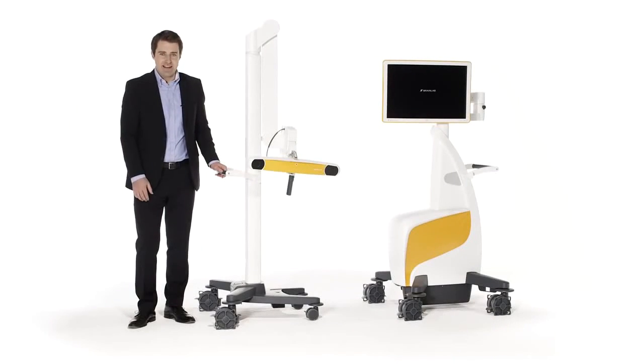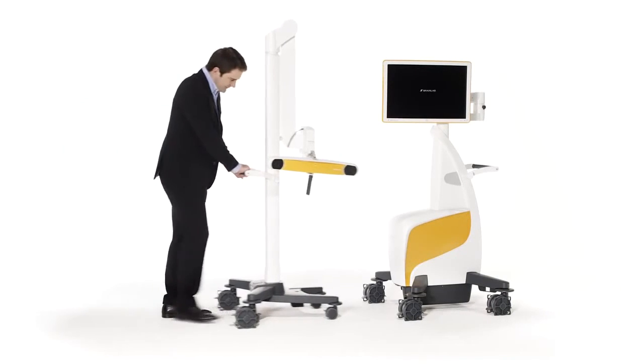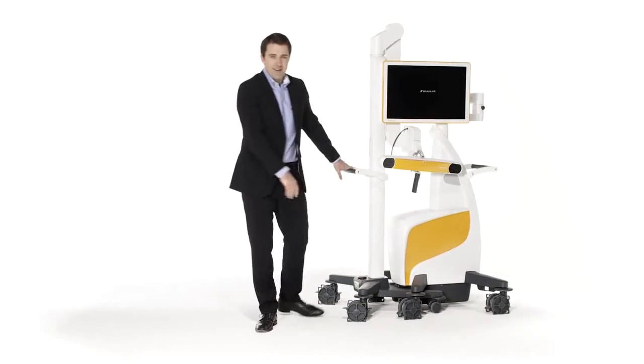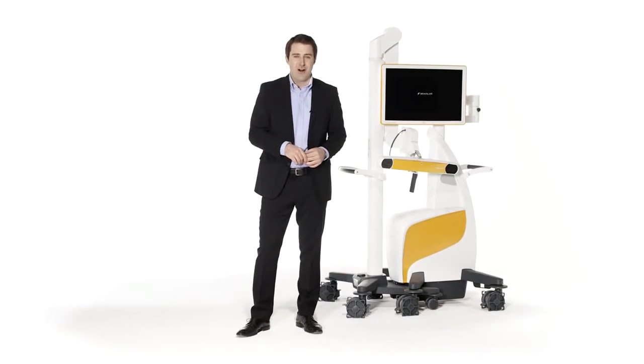After the case, the camera and the monitor can dock together for transport and storage. Curve: transforming navigation in the OR.